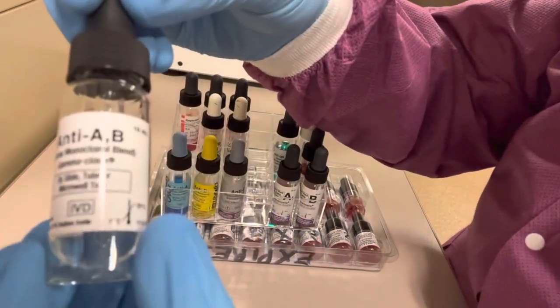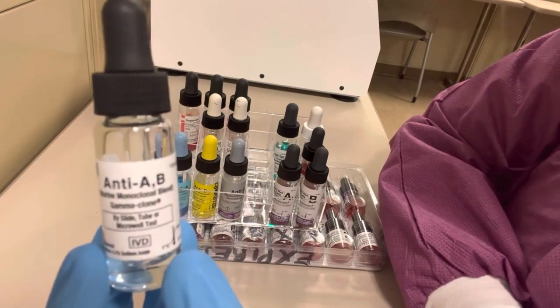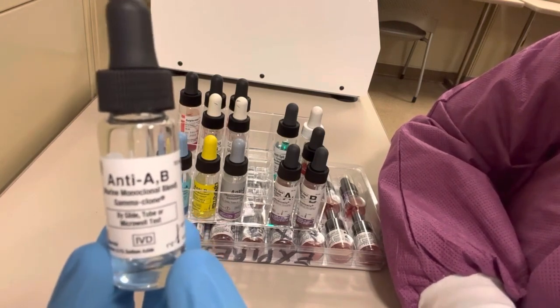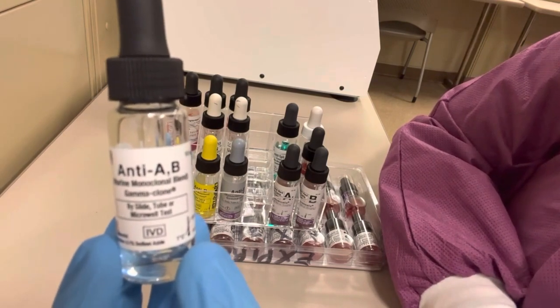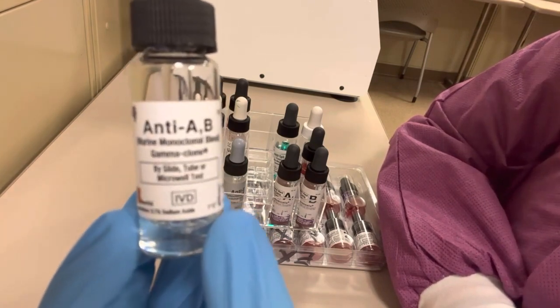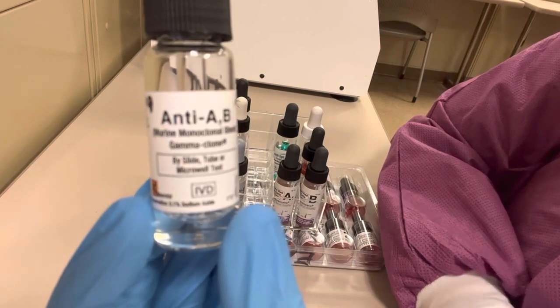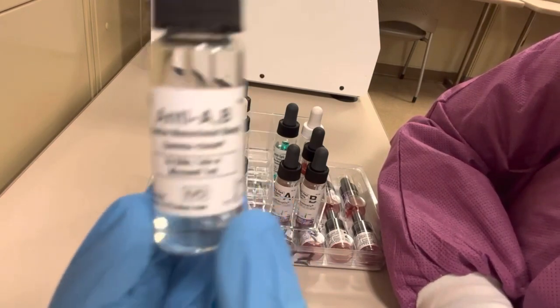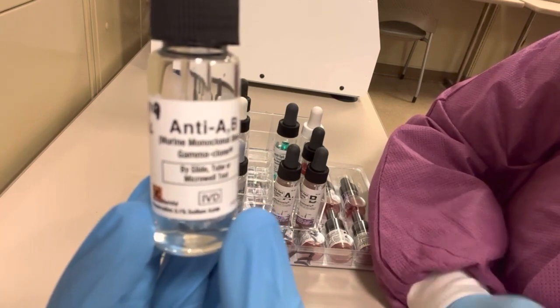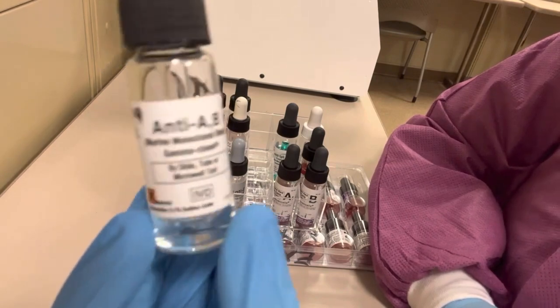Anti-AB reagent is also used in red cell determination of the ABO blood group. It contains antibodies towards AB antigens, so if red cells agglutinate with this reagent they have A antigens, B antigens, or both. Anti-AB is clear like anti-D and is not used for normal patient ABO typing — it's mainly used for donor red blood cell confirmation. If donor blood is labeled as O, it can be confirmed as O if it types negative with this reagent, since O red blood cells have no A or B antigens. This is quicker and more cost efficient than using anti-A and anti-B separately.